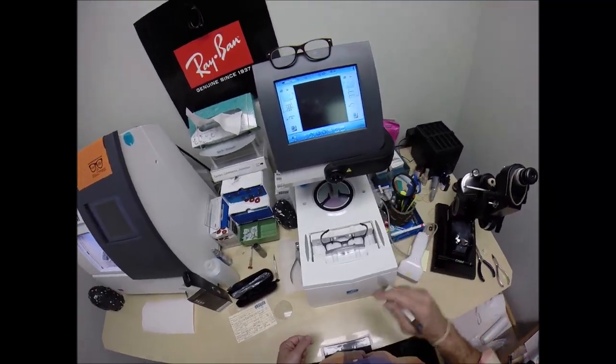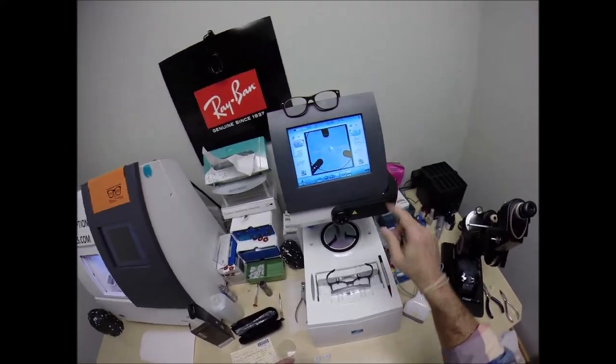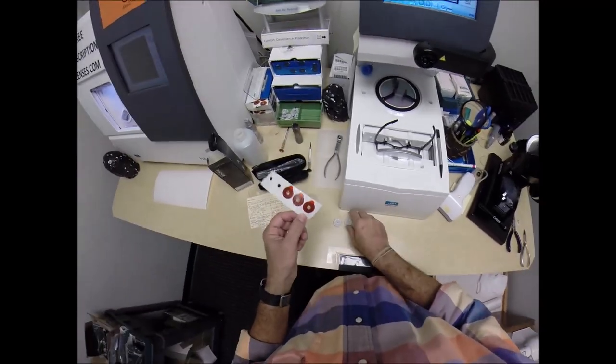On the internet, you only get one chance to make everything perfect, so I've got to give you the best for the least amount of money. Okay, so that is what we'll be doing. I need to get your lenses prepped.